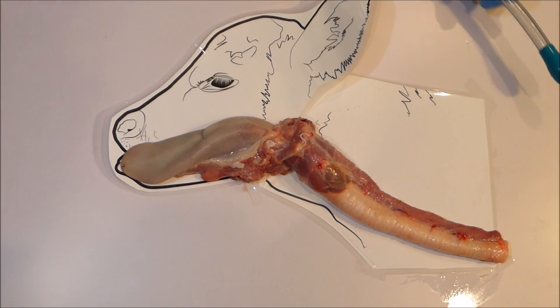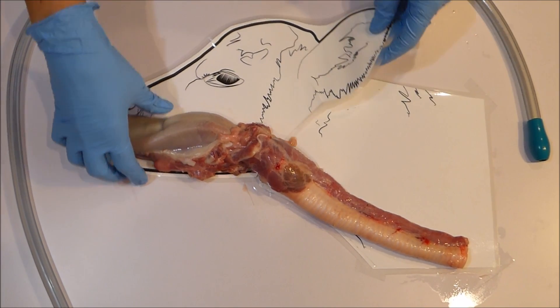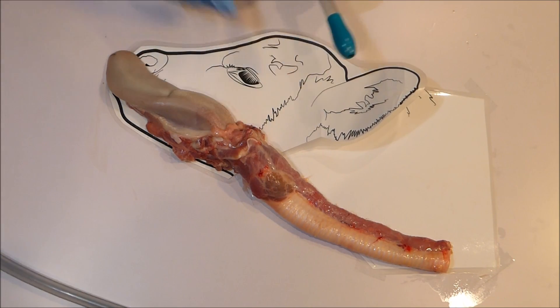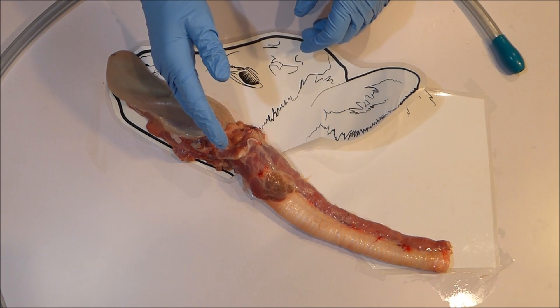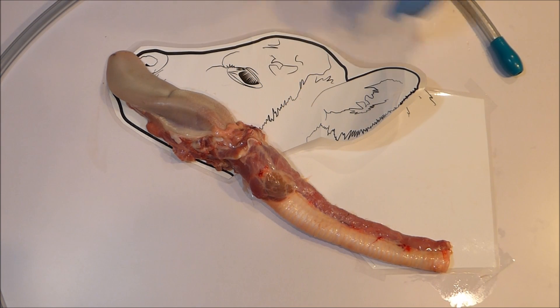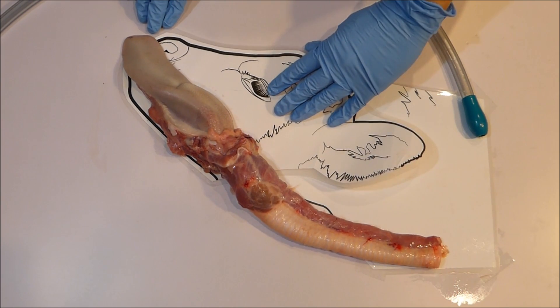As you can see the airway is below the esophagus. So the easiest way to avoid the airway altogether is not to force the calf's nose upward. If the calf's nose is forced up and the tube is forced down you might encounter the airway. Note, even if you are aiming down in this direction the airway will automatically close to prevent the tube entering, and because of the size and shape of the tube tip considerable force is still required to push a tube through that entrance into the airway. To avoid any chance of airway entry, never force a calf's nose upward.